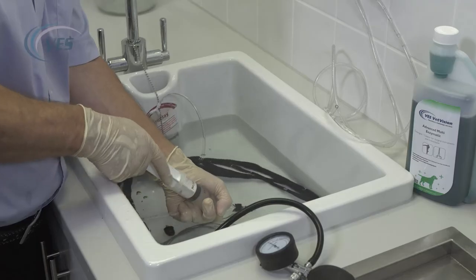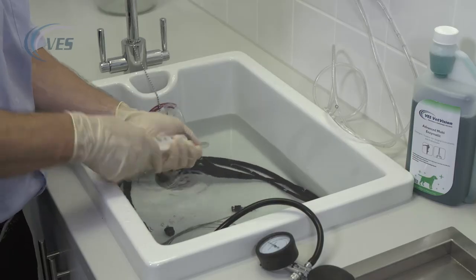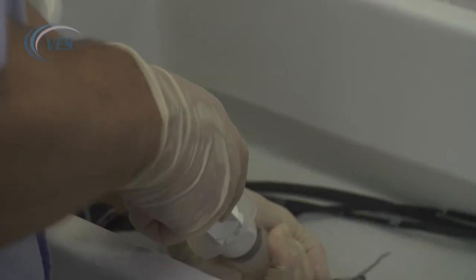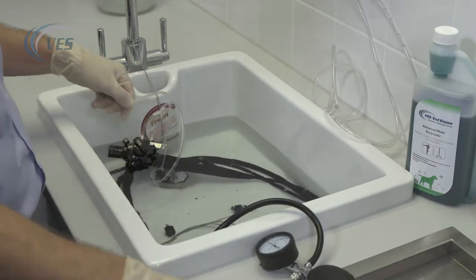If you've used any biopsy forceps or cleaning brushes you can certainly submerge them in the enzymatic. Suck up the enzymatic and flush through a couple of times, and when you're happy that there's no pathology coming back through, proceed to the next step.